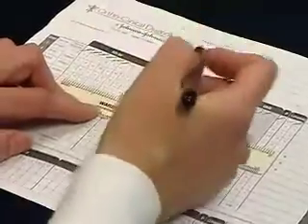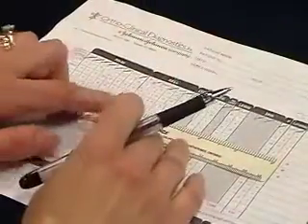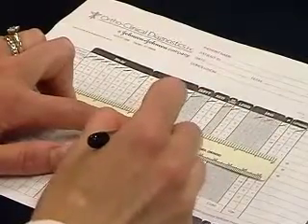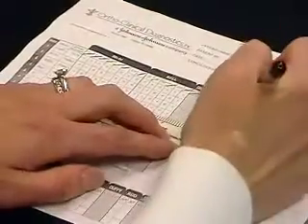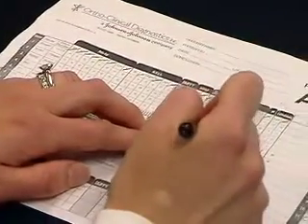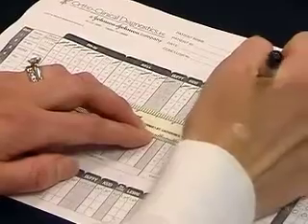Get rid of F and V. JKB is now homozygous on this cell, so we can cross that off. And so is Lutheran B. And also N.